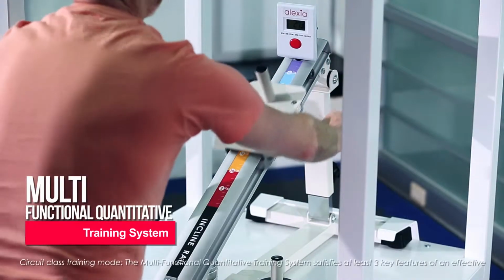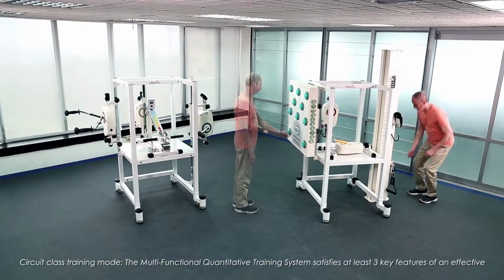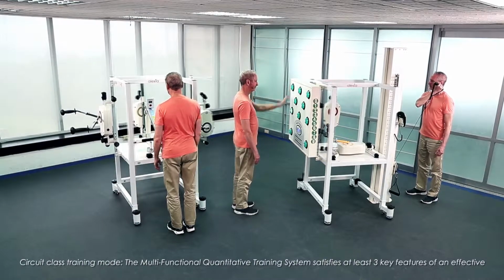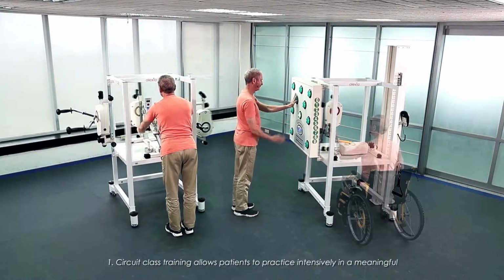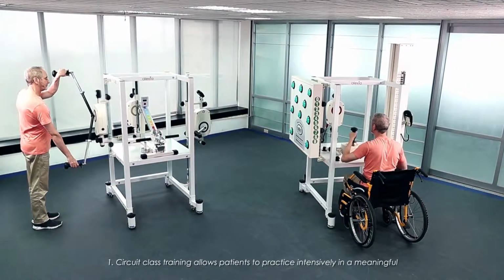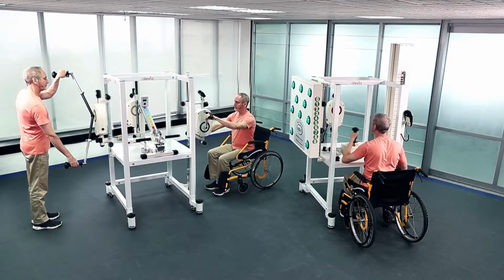Multifunctional quantitative training system. Circuit class training mode. The multifunctional quantitative training system satisfies at least 3 key features of an effective and efficient physical training program. 1. Circuit class training allows patients to practice intensively in a meaningful and progressive way that suits their individual needs.